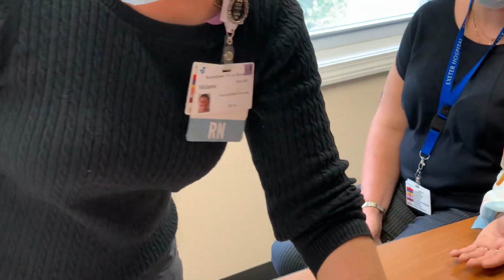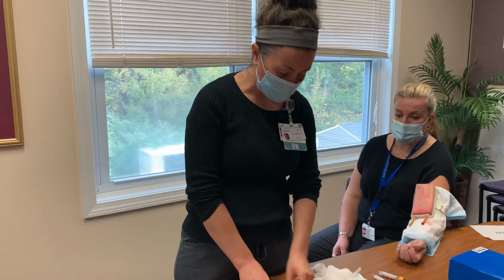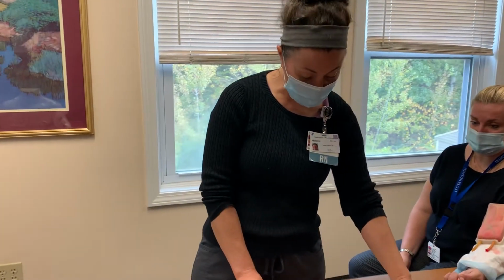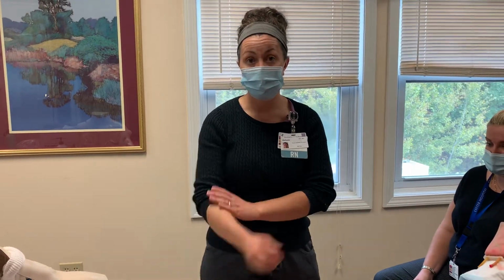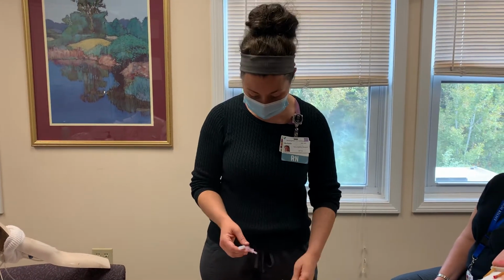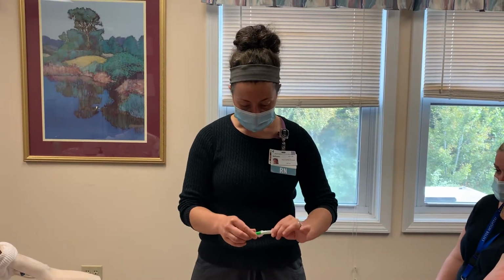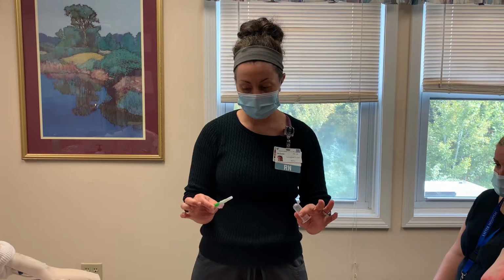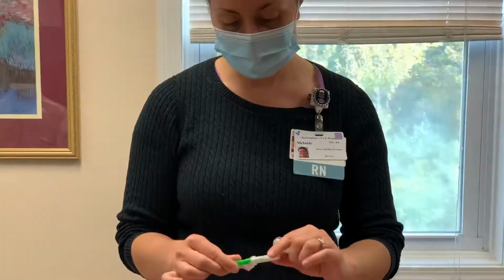All right, we're going to talk about some of our supplies. So we're going to be using straight needles. That's really what you want to be using first. That is the standard going in the AC. We have two different types of straight needles, a 21 gauge and a 22 gauge. So I will just show you guys the way these put together in case you're not very familiar with these. Just think of clear to clear.